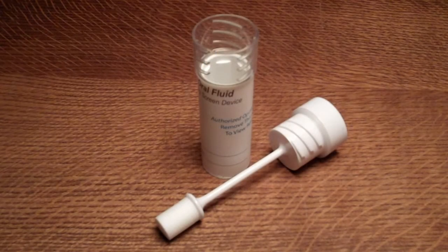In this video we're going to demonstrate a saliva drug test, in this case the UKDT six drug tube that screens for six common drugs. The combination on this particular test is cannabis, cocaine, opiates, amphetamine, methadone and benzodiazepines.